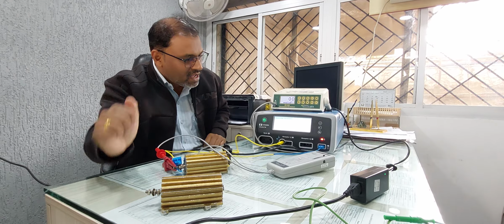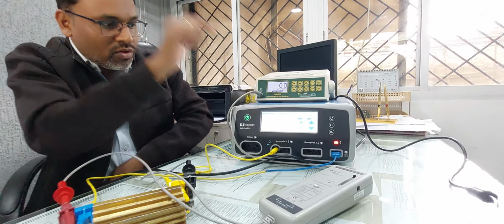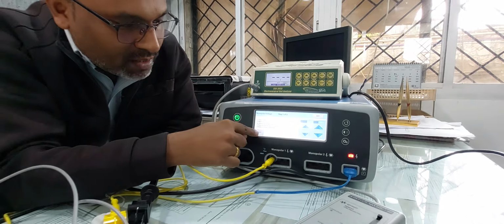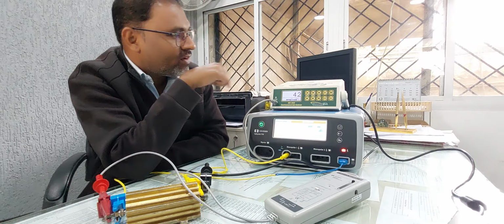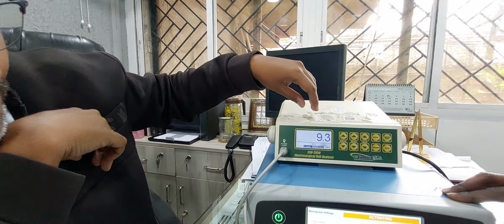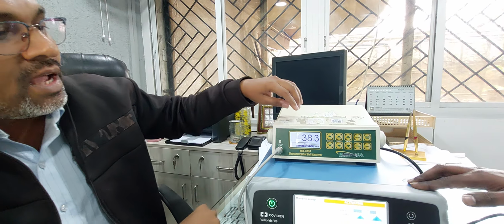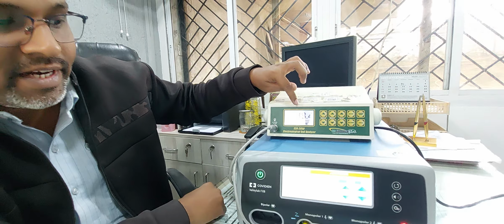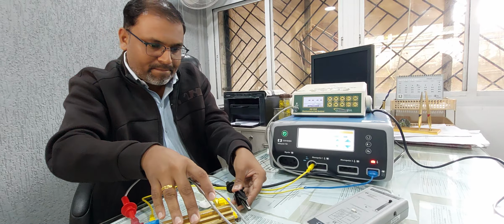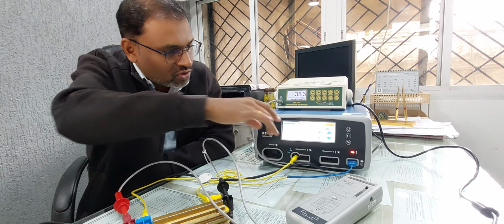Now the basic setup is ready. So we just have to press next. See, now you just observe, press the start, right? So what is the target value? 35, right? And suppose I am going to press start, so I have to adjust the target value as 35. See, it is not connected properly. See, and what is the value here? Here the value is 38, right? So we have to adjust the value. Connect all probes properly. If it gets disconnected, it will not give you the proper value.